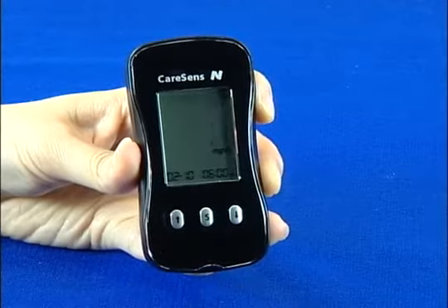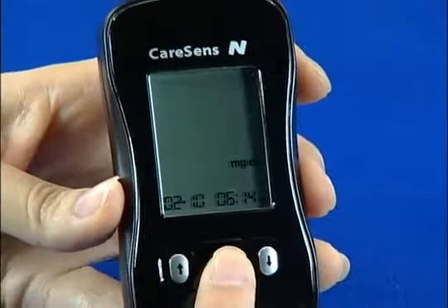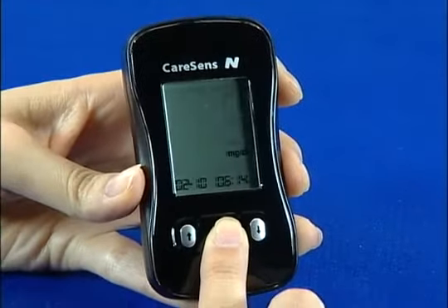If you don't want to delete the values, push and hold the S button at no. Then the power will turn off and you will leave the set mode.